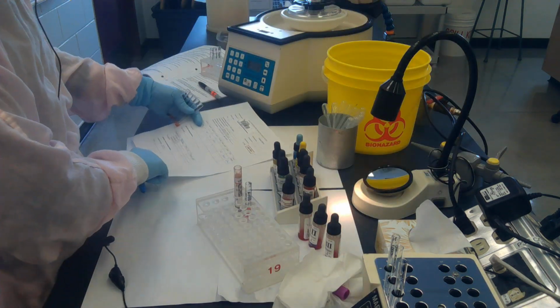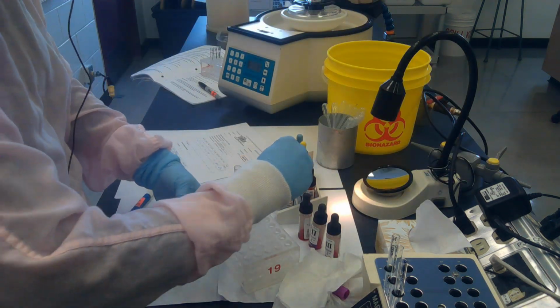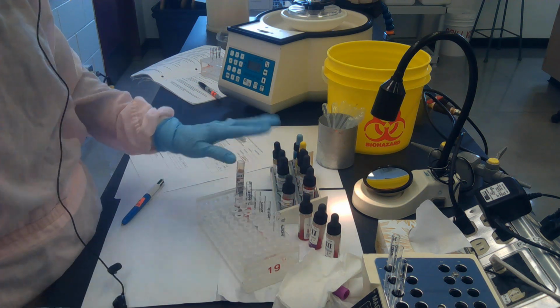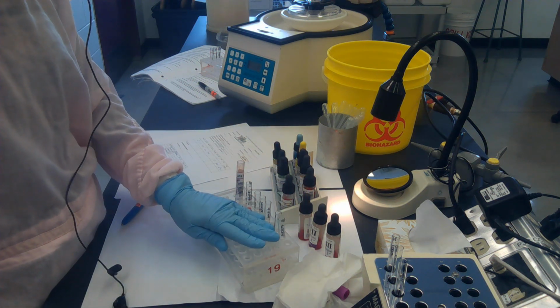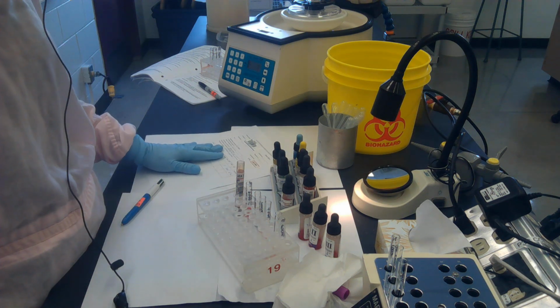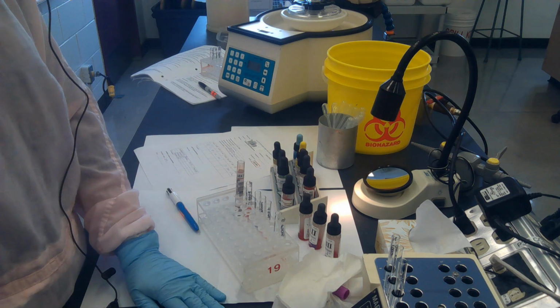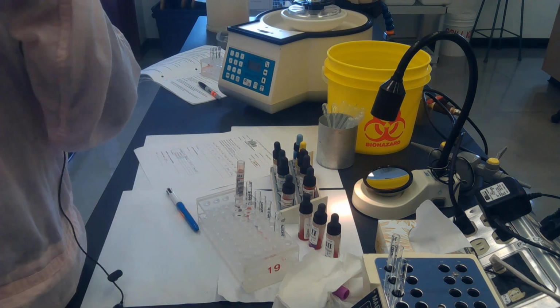I'm placing these test tubes back in the rack beside my patient. So a careful check to ensure I've got them beside the right patient, and they will remain there until I'm finished the work on this patient, and then I'm going to do a double check to make sure I got it right. So let's pretend that our screen has finished incubating.